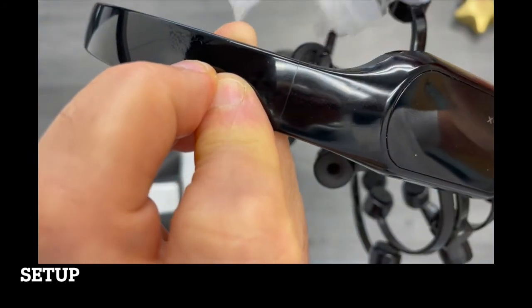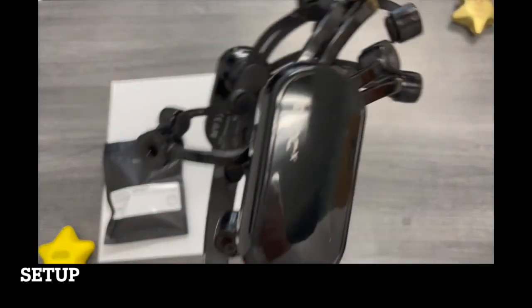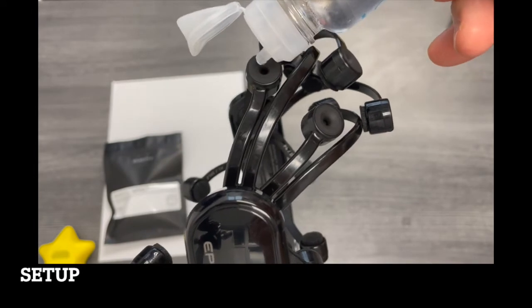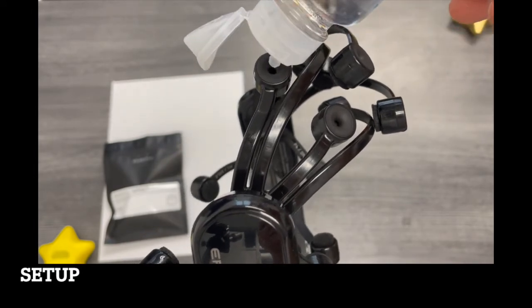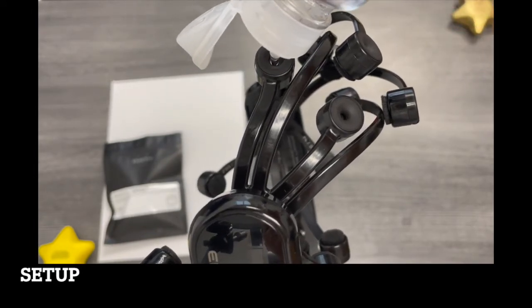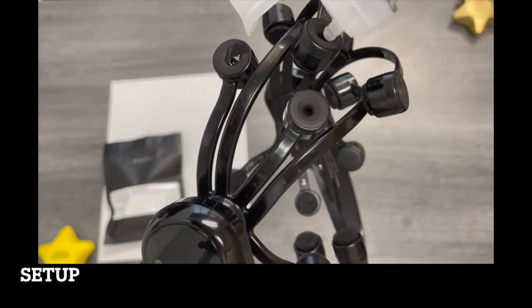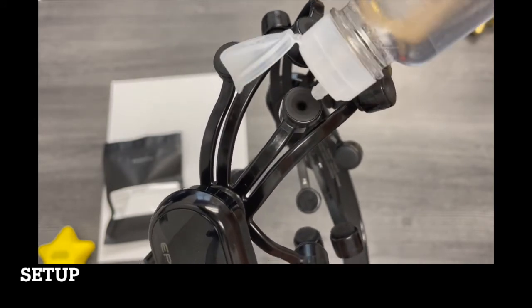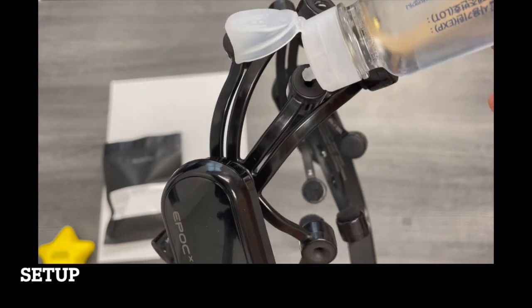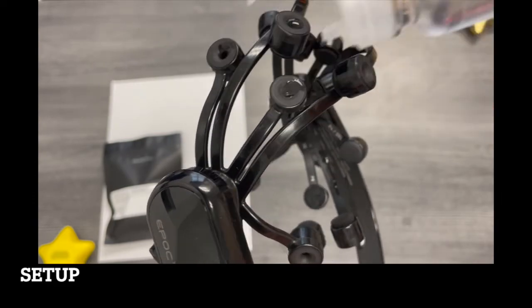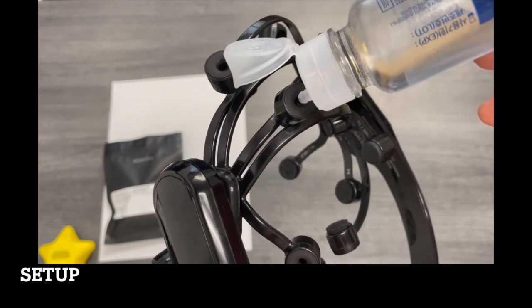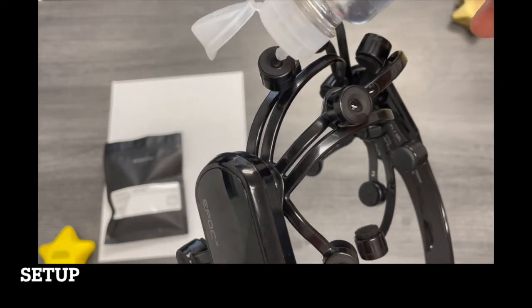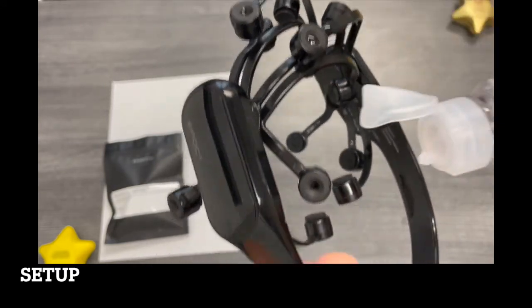So you need a colleague to help you and drop a few saline drops in the back of the electrodes so that you maintain a good electric contact with the skin and a high quality recording.